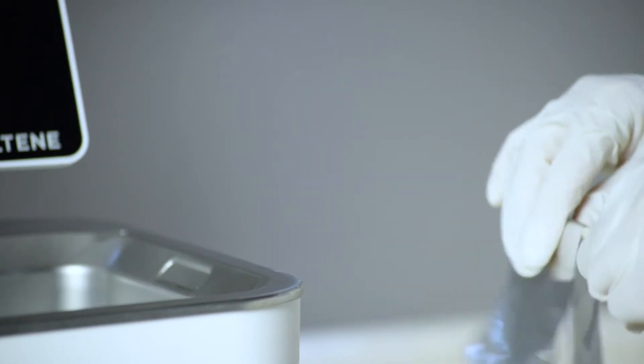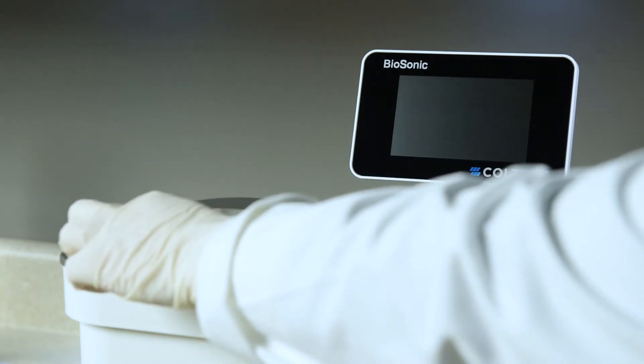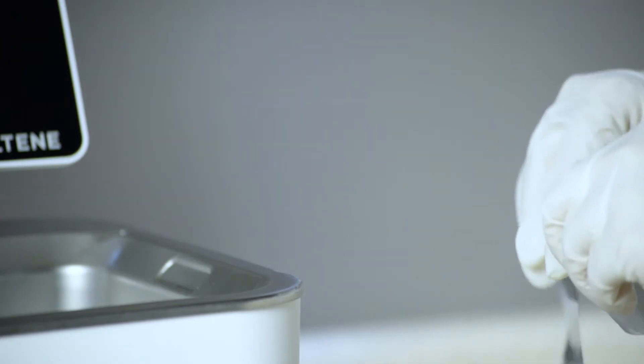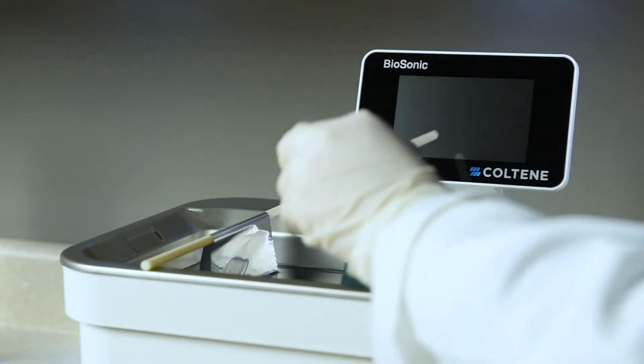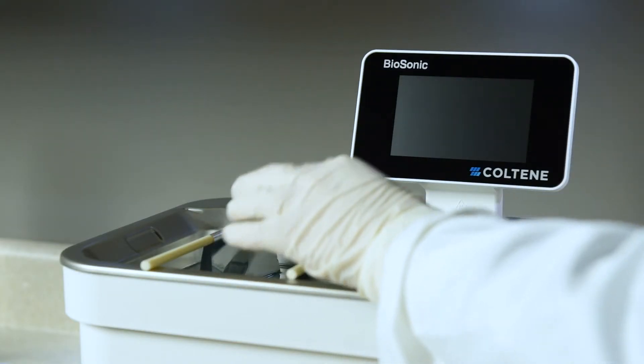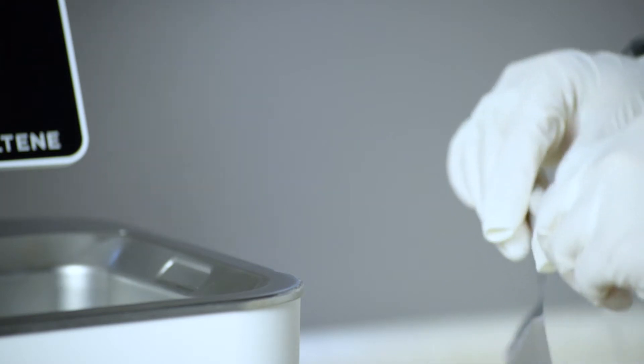Using three rods, suspend three pieces of foil in the solution, making sure the edge of the foil is approximately six millimeters, a quarter inch, from the bottom and sides of the tank. Aluminum foil should not come in contact with the bottom or sides of the tank.